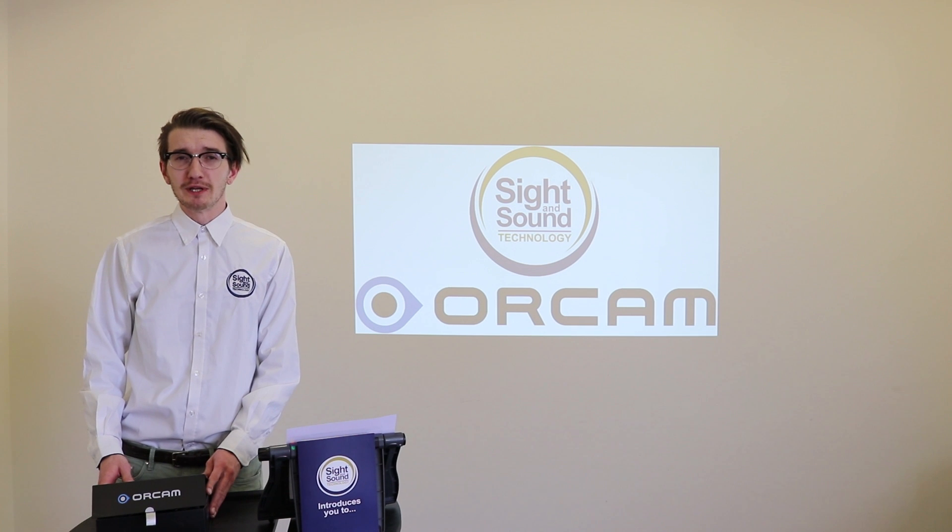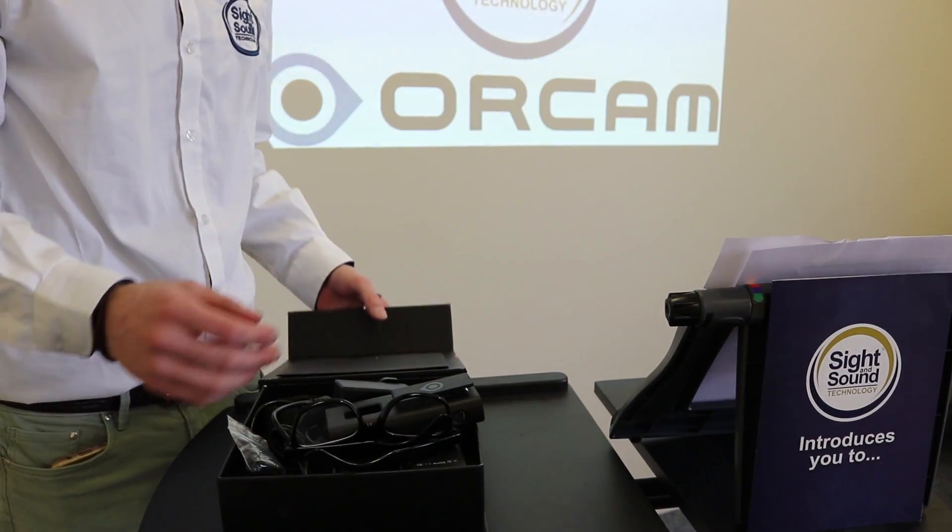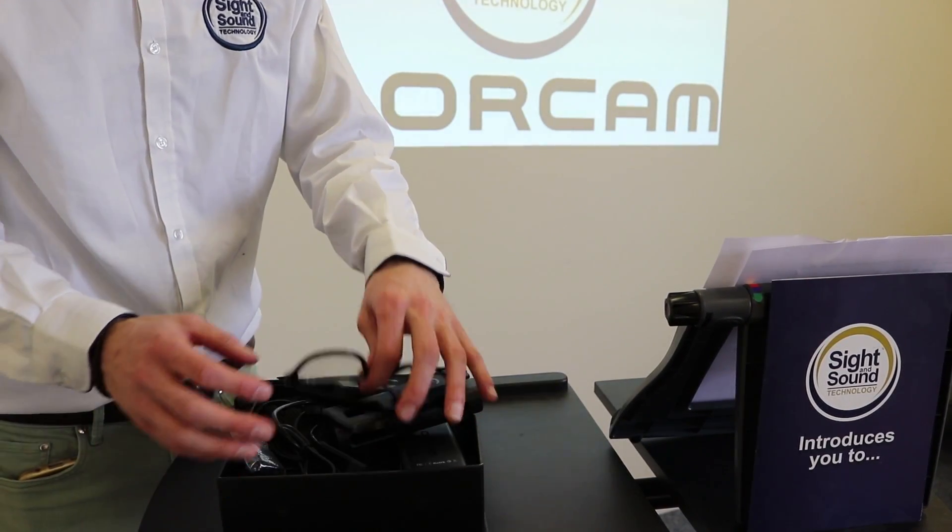I'll just show you the basics including how to mount the camera onto the glasses and I'll show you a few other neat hints and tips along the way. So let's open the box of OrCam and see what's inside. I'll show you all what's included.